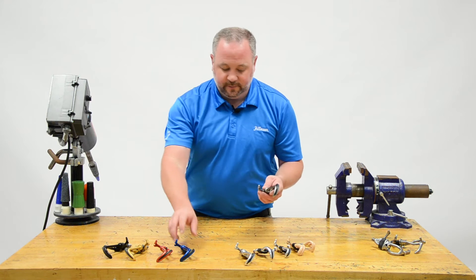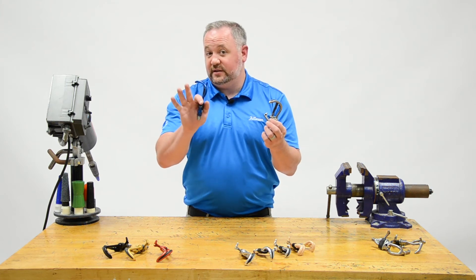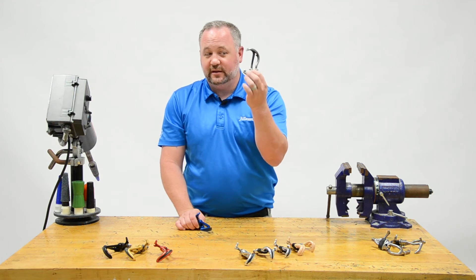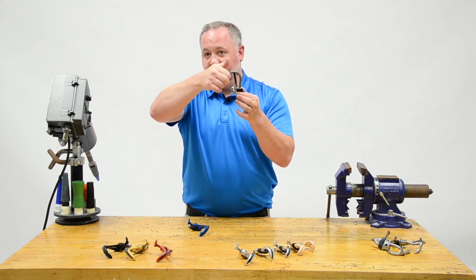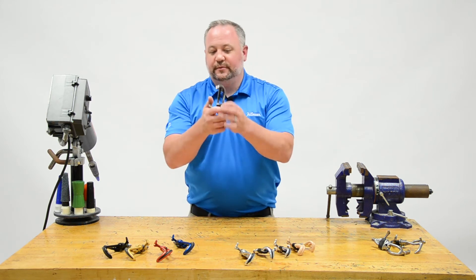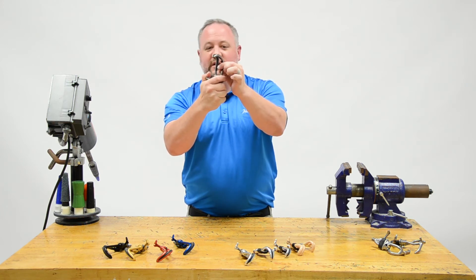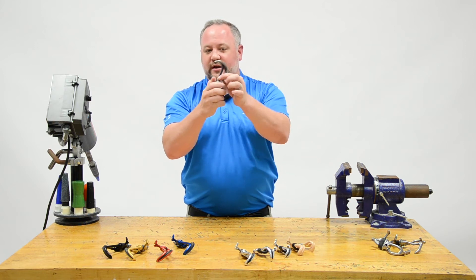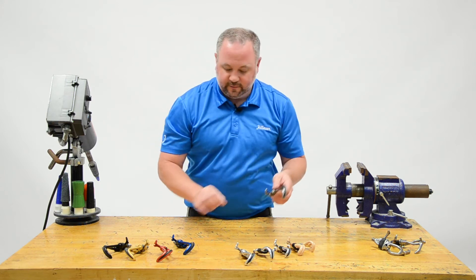The 5X aluminum, 5XTI, and 5X stainless all have essentially the same shape. The aluminum weighs about 50% and the titanium about 60% of the stainless steel weight, but the titanium hook is as strong as the stainless steel hook. For patients hanging a lot of weight off the hook, titanium hooks won't bend the way aluminum hooks would. The little curved shape on the hook is great for holding pencils — it used to be for cigarettes, a little trivia — and there are also features like a small star shape at the bottom for holding different objects.